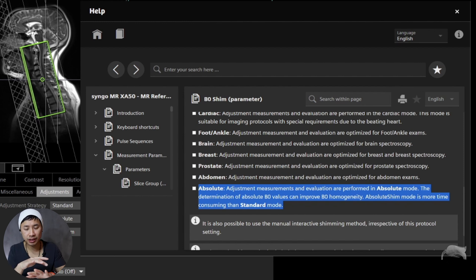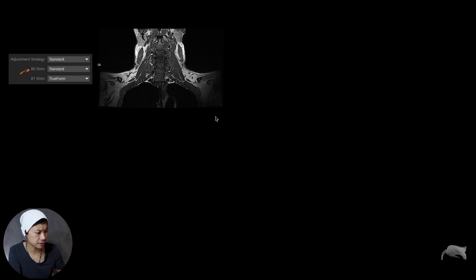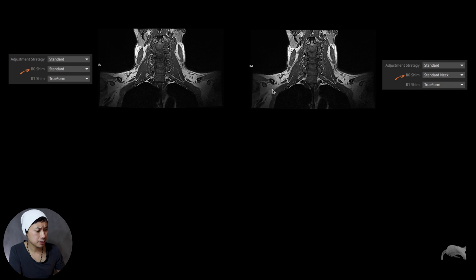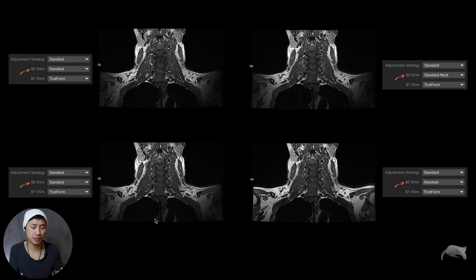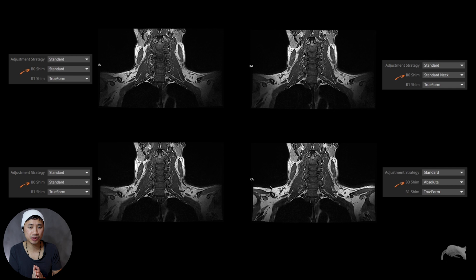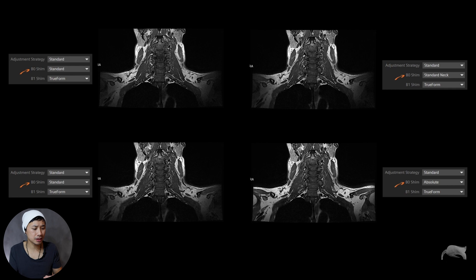We did four tests with different shim modes and here are the results. With B0 shim Standard, you can see the images are not homogeneous across the whole field of view — it's very stark and not good at all. Standard Neck looked more or less the same as Standard — not good at all. When I extended the B0 shim green box, it looked similar. But Absolute mode — Absolute seems to have improved the image a lot. We're going from those kinds of images to this, which is a huge improvement. I also saw a post on LinkedIn where someone was using Absolute mode on a fat-sat sequence for the thoracic spine, so it seems Absolute mode is helpful for fat-sat and difficult areas — and it works on T1-weighted sequences as well.